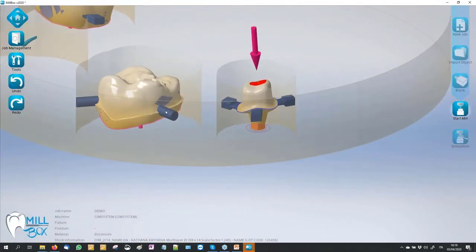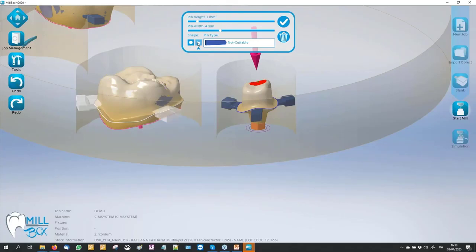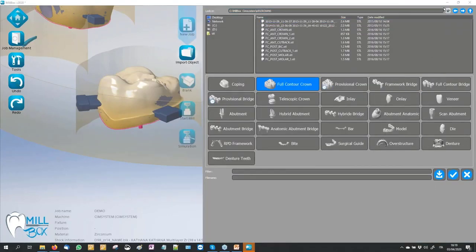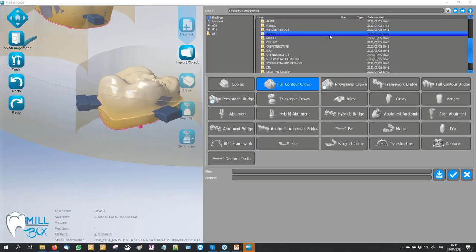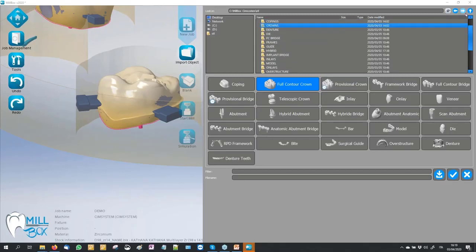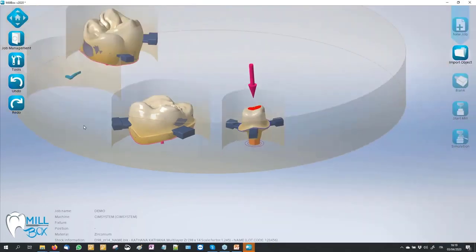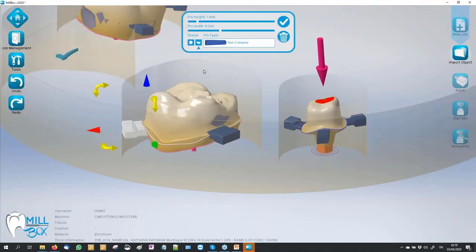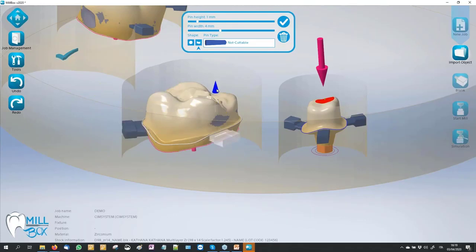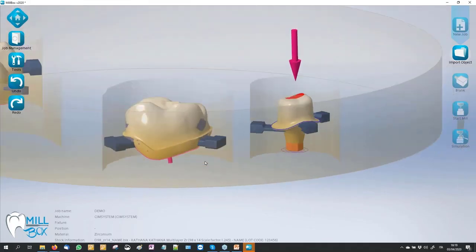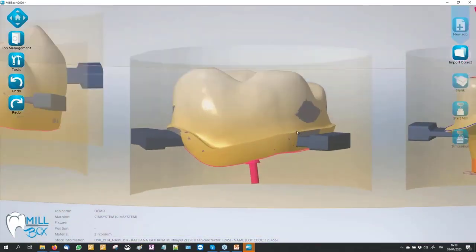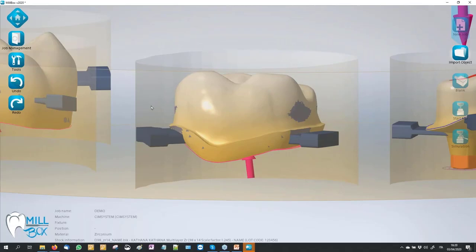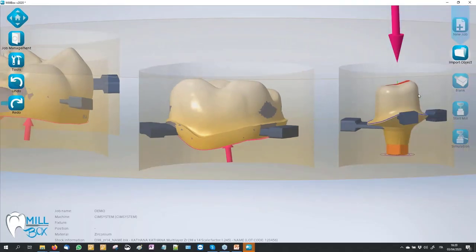This is a big opportunity. If you have a telescopic crown, we can set our rectangular connectors near the end of the margin line. In case we have a telescopic crown here, our job is done like the personalized abutment. Of course we can go back, like I said before.